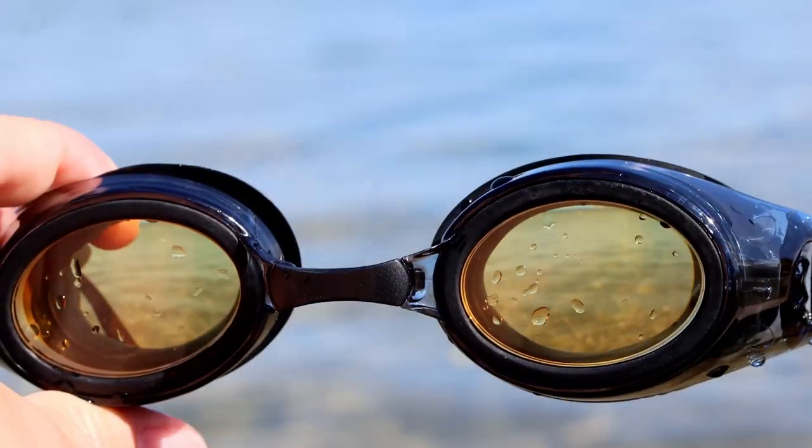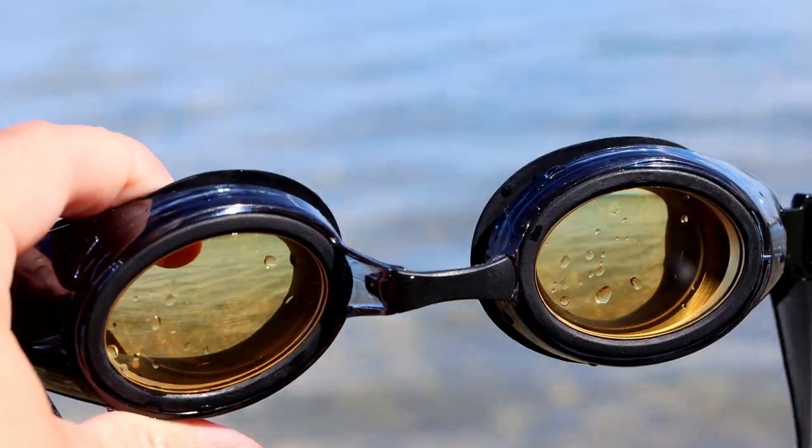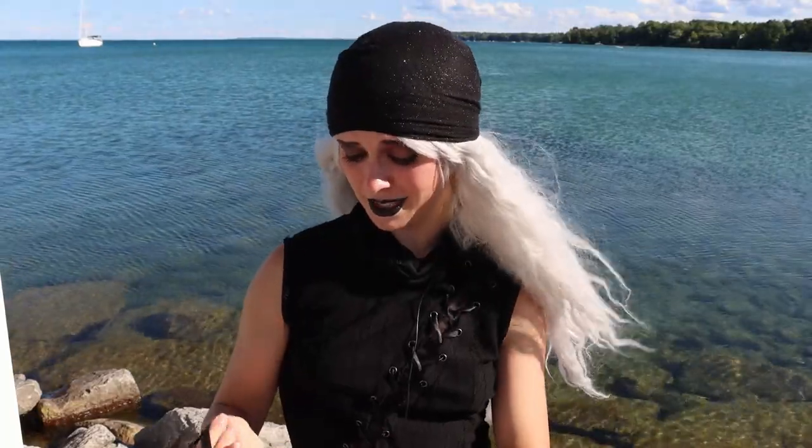The answer you're dying to know is: do they work? I'm happy — or rather depressed, I'm not sure — to announce that these goggles have the exact same prescription as my glasses, which cost me five hundred dollars. These are about two hundred dollars retail, and they work a lot better than my glasses.